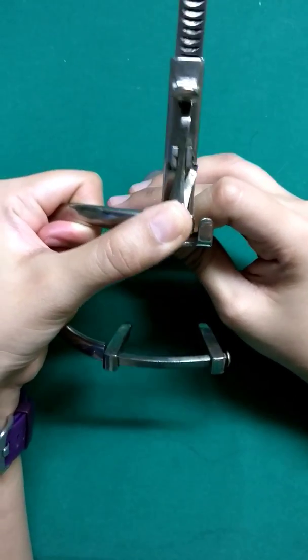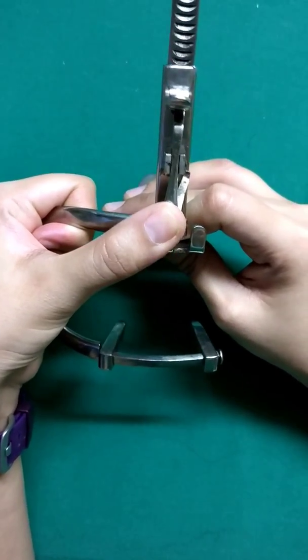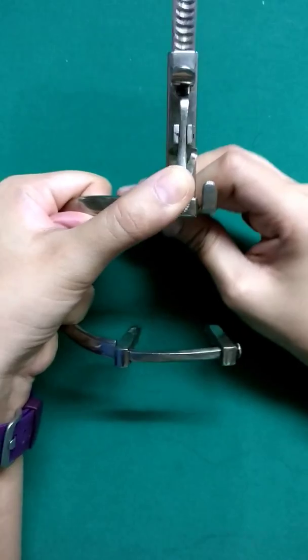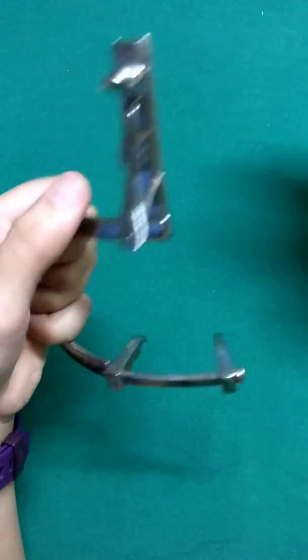If you want to further move it, you have to press this button and then you have to slide it to and fro. For complete removal, it has to be slid out.